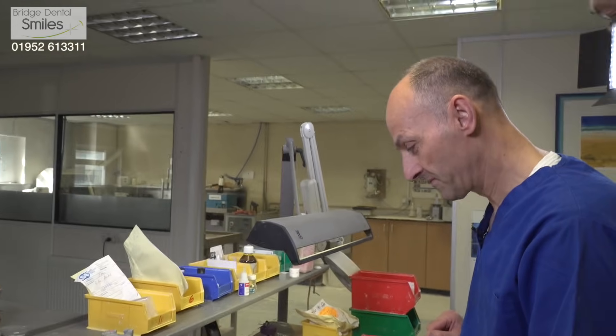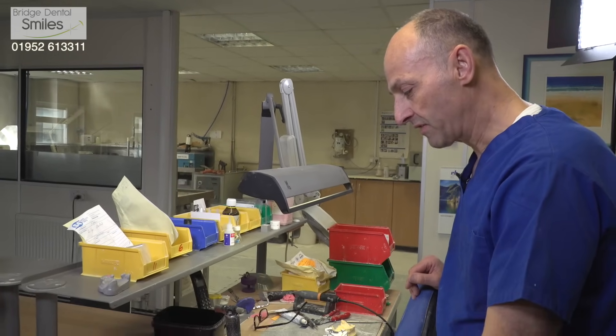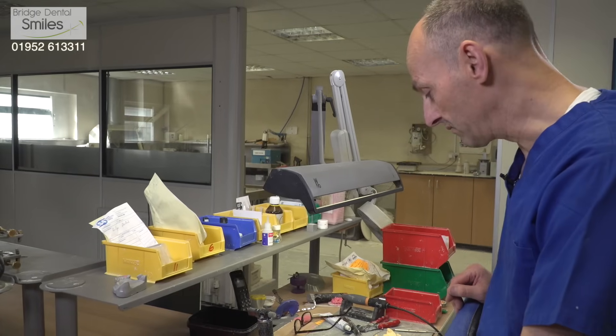I've often taken photos for you of the patient before they lost their teeth — always useful. You'll use a chart like that to choose the teeth for the denture, and we can match photographs up. It's not very often we come unstuck with that — normally there's some mould on there that's suitable. With the private teeth they've got that natural appearance and natural opalescence, more vitality in them that makes them in some cases virtually indistinguishable — particularly when mixed in with natural teeth in the mouth. With some of the more standard teeth, that's not quite so easy to do a good aesthetic job.